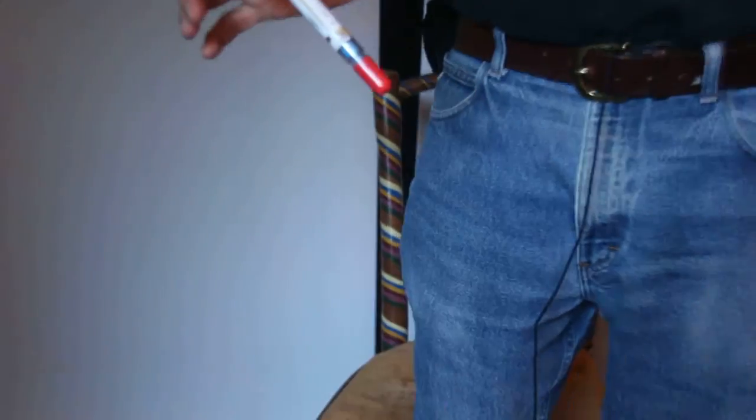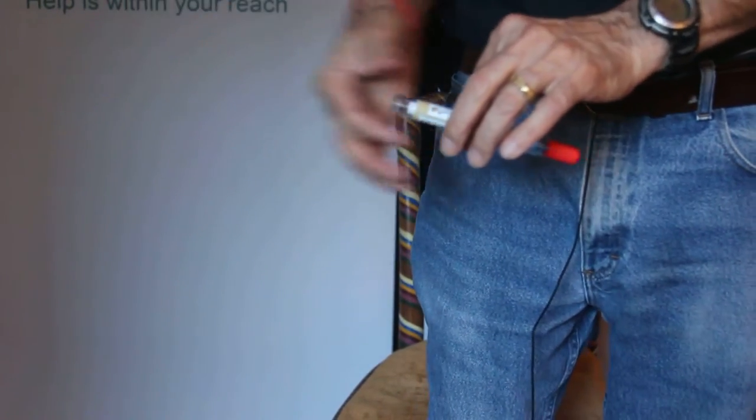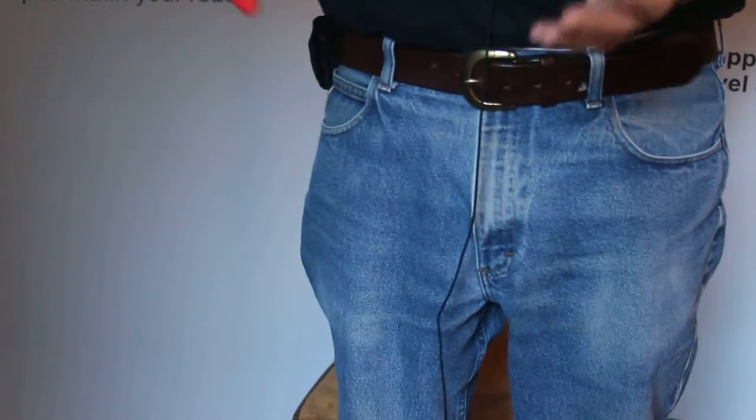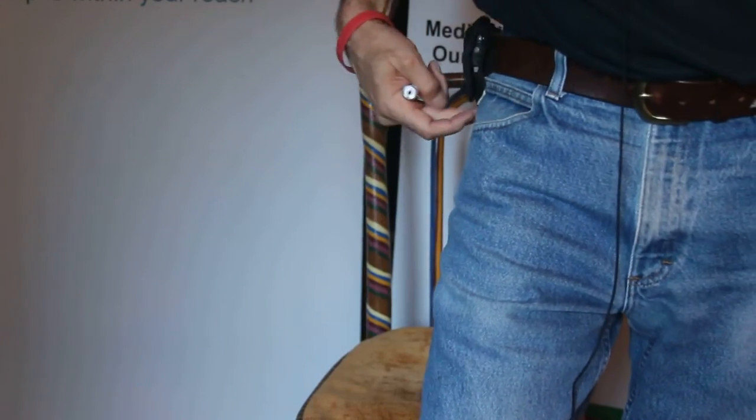So it could be standing. Once again: pull off cap 1, pull off cap 2, and then it's just a swing and a stab. You're going to use a separate pen for each time you inject the person, obviously. Between the knee and the hip, halfway between.